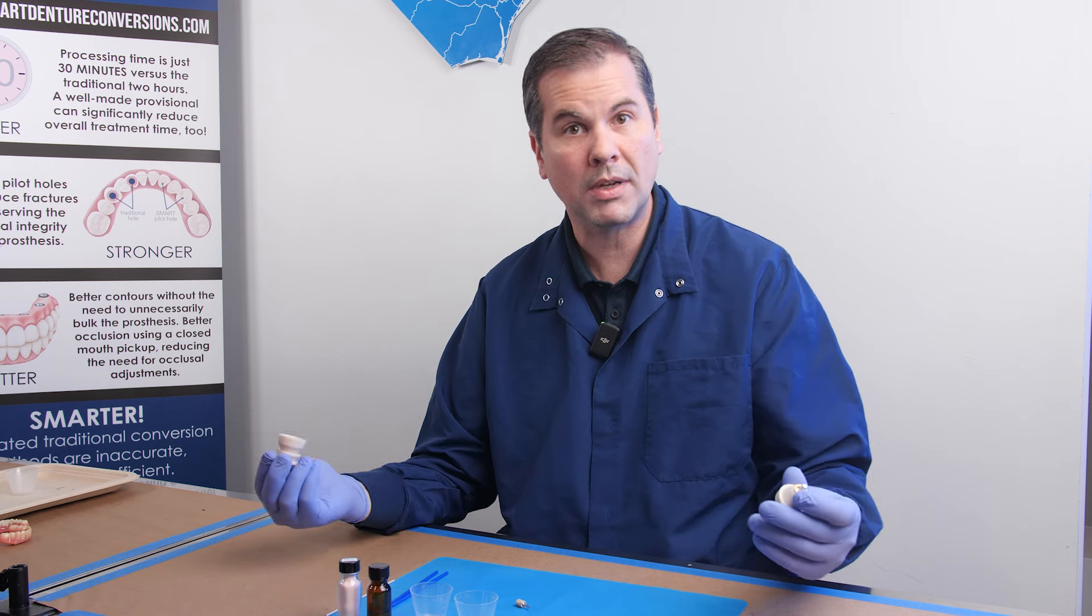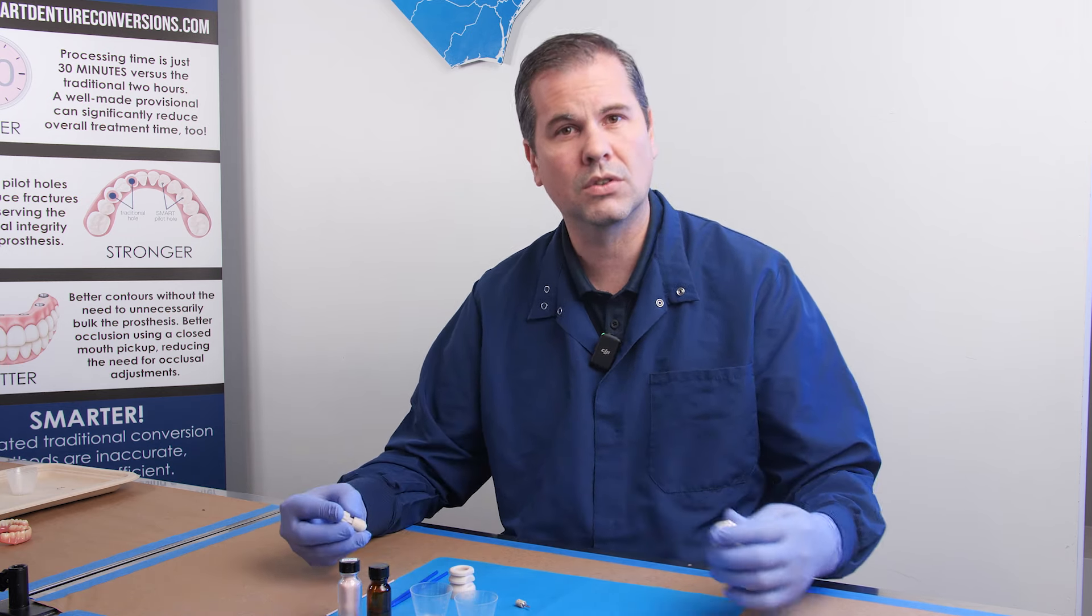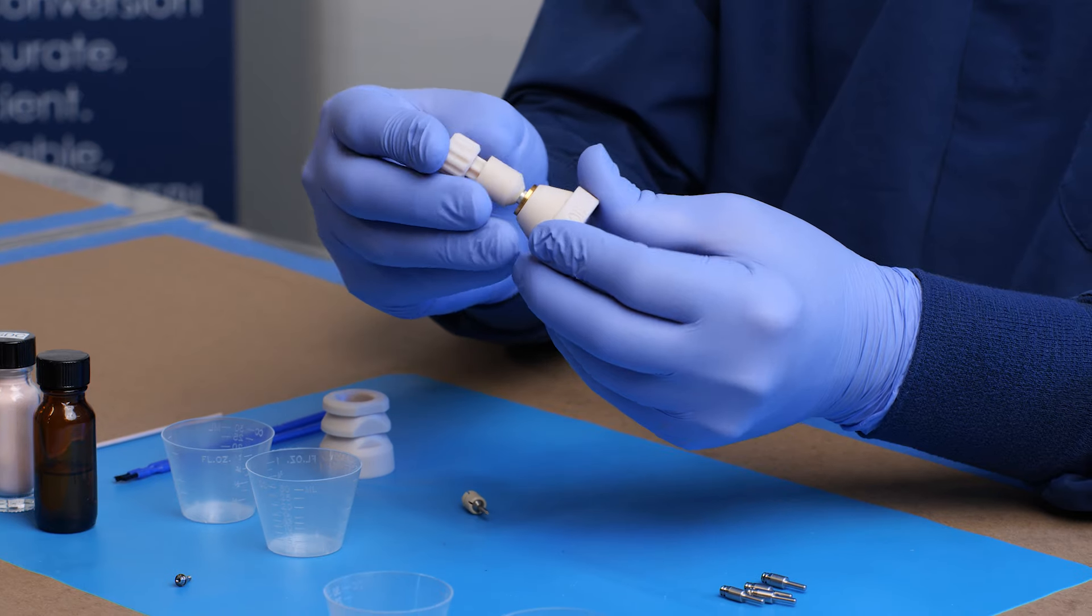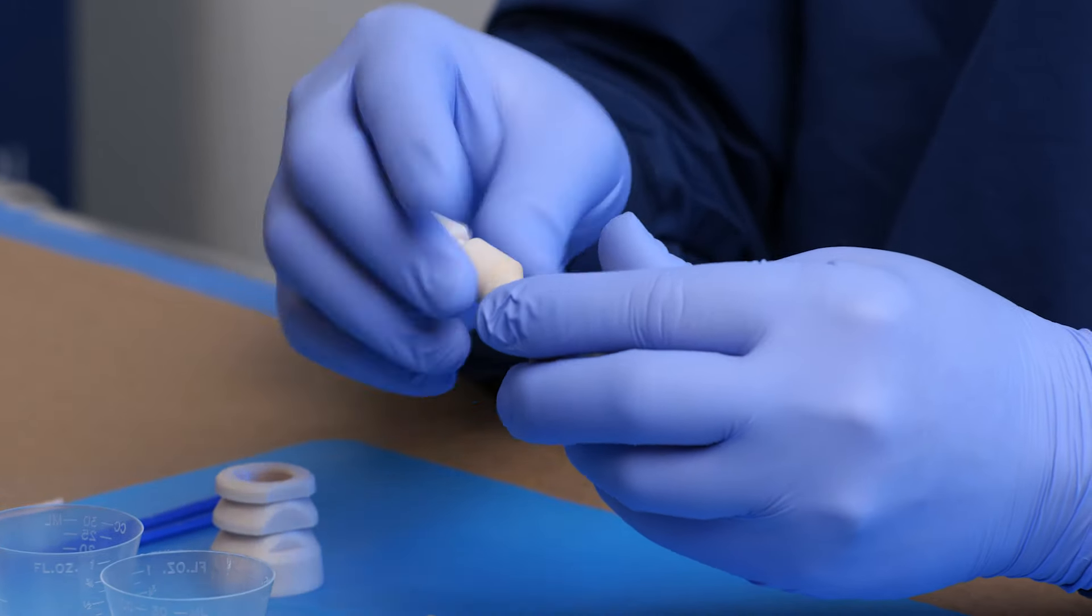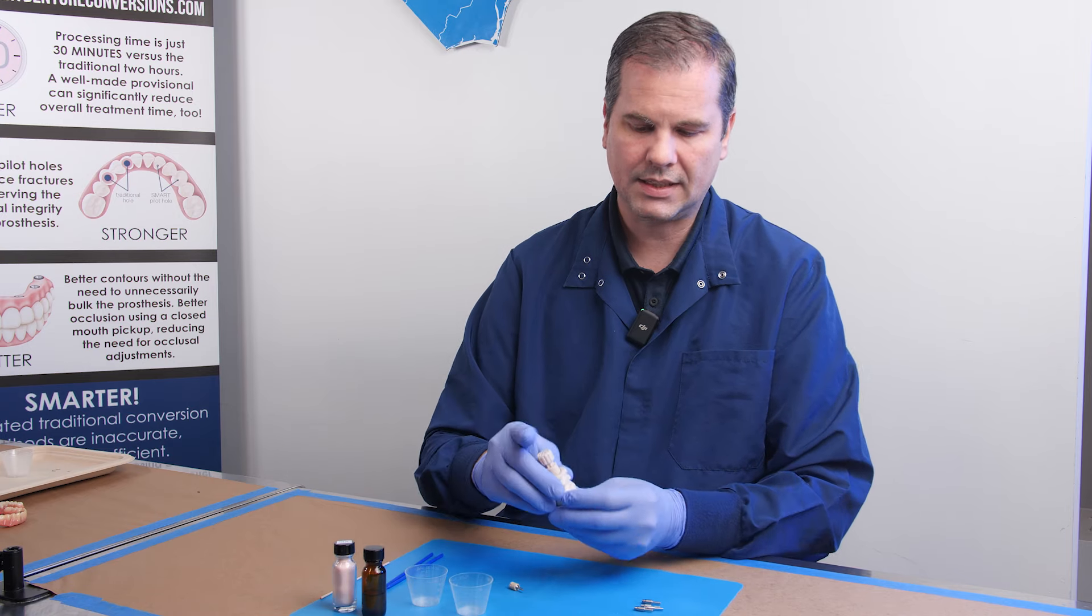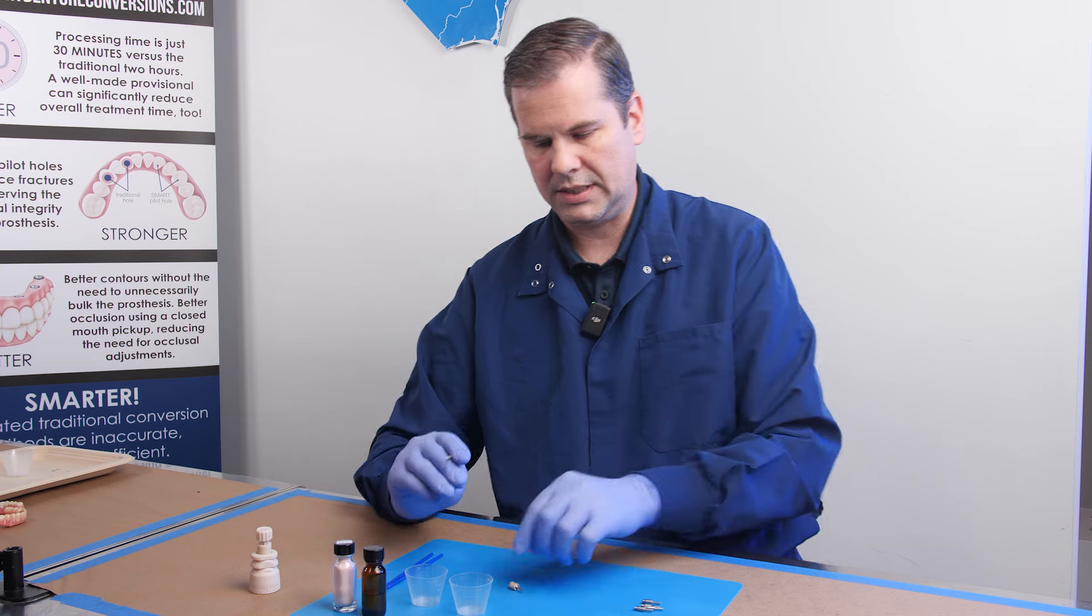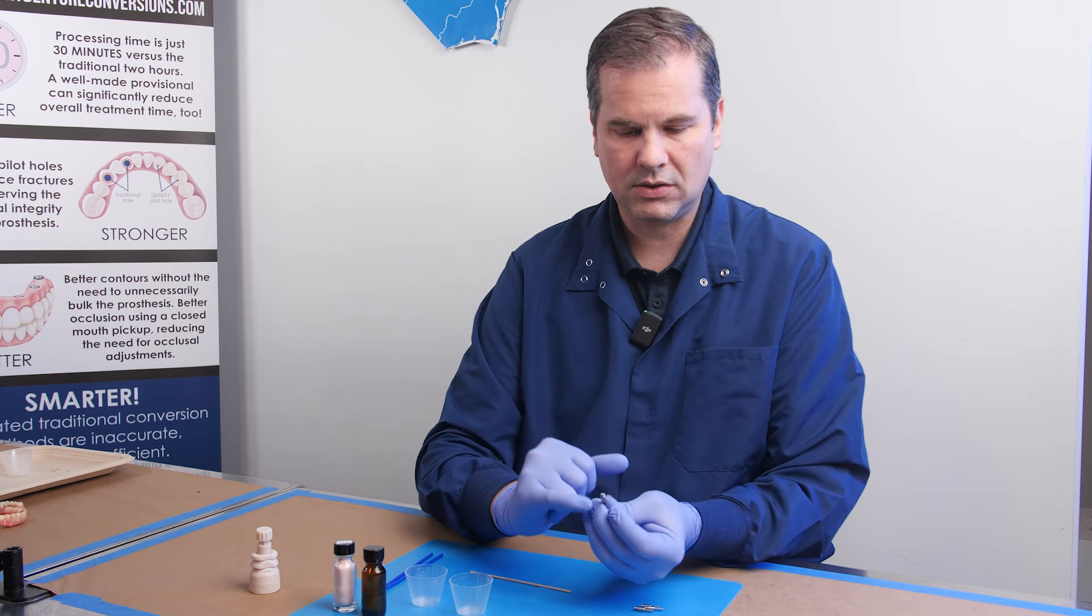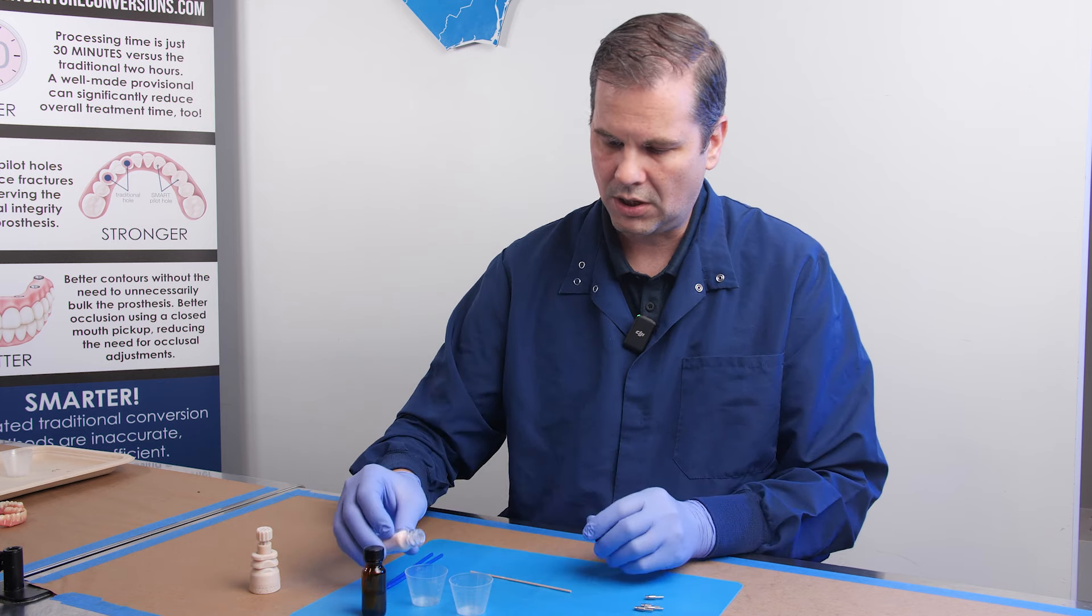You didn't break the screw. There's an easy fix, and we're going to have video tutorials about how to troubleshoot this system. The separable fastener can be reassembled, no problem, and then re-attempted. Once the separable fasteners are securing the tie bases to the coating mandrel, we're now ready to pre-coat.